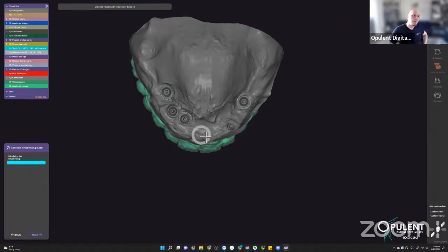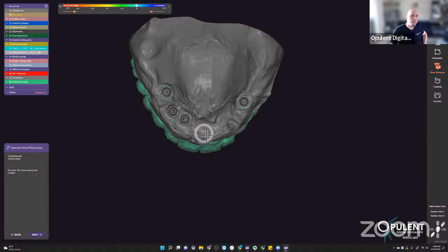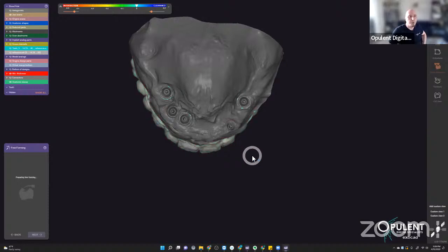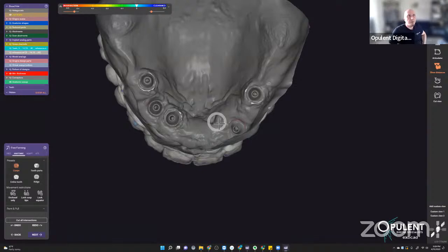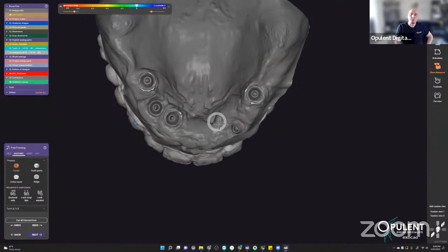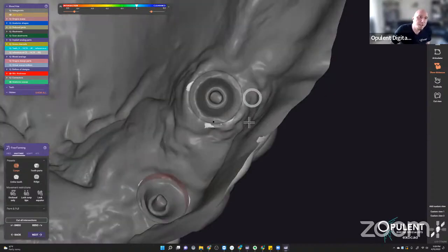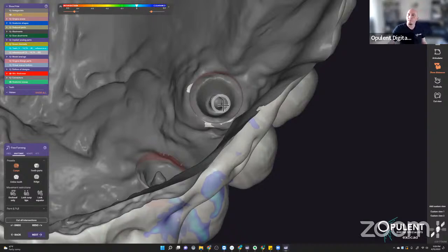Ultimately closing this and loading another scene file. We'll take a peek at the final and I'll switch my dongle over to show the nesting portion. It's already 5:13 and I think you guys want to see the nesting. There are areas I would probably touch up with a handpiece after milling. You have to set your expectations to the mill — even with a 5-axis strategy there are usually things to touch up before putting it in the sinter furnace.